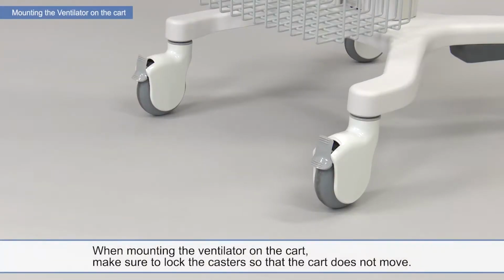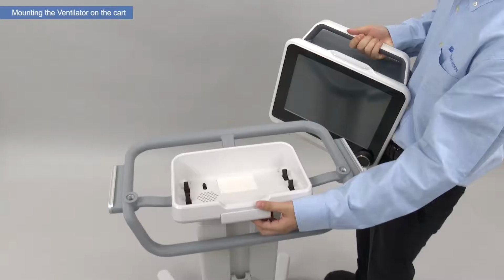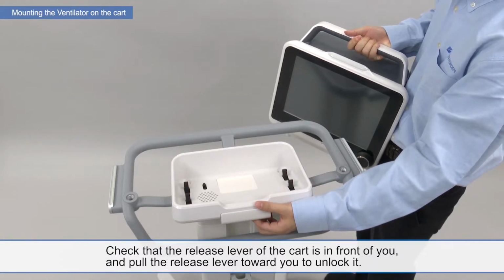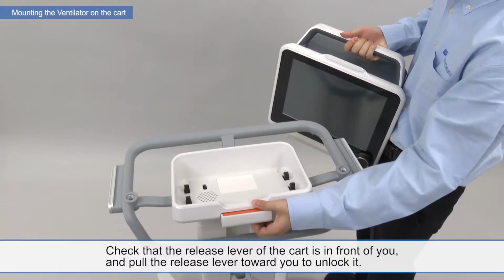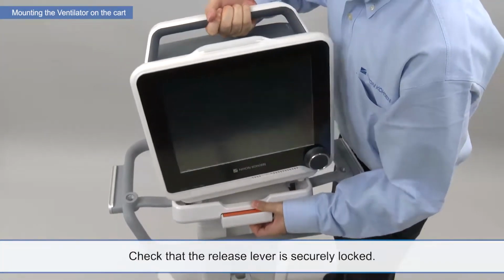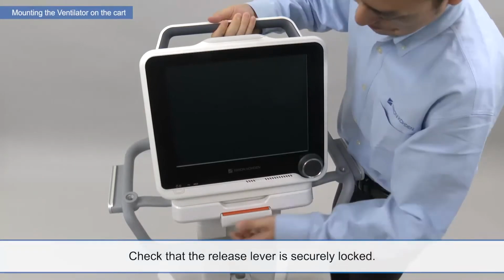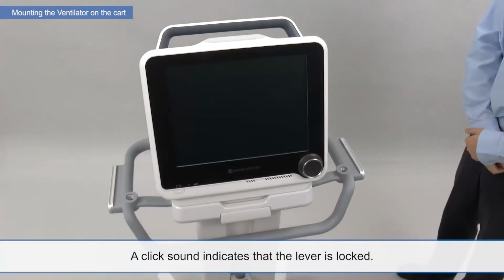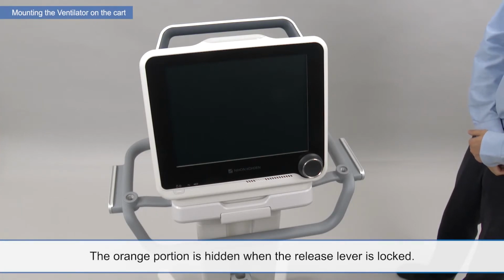When mounting the ventilator on the cart, make sure to lock the casters so that the cart does not move. Check that the release lever of the cart is in front of you, and pull the release lever toward you to unlock it. Place the ventilator on the top assembly of the cart. Check that the release lever is securely locked. A click sound indicates that the lever is locked. The orange portion is hidden when the release lever is locked.